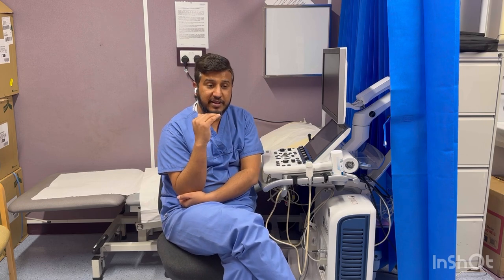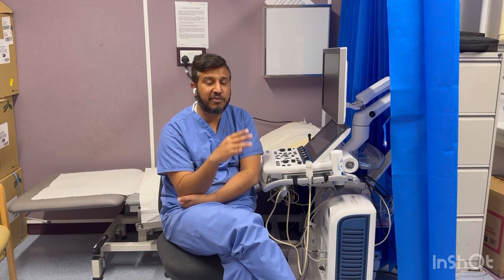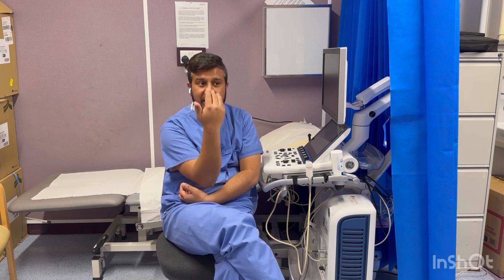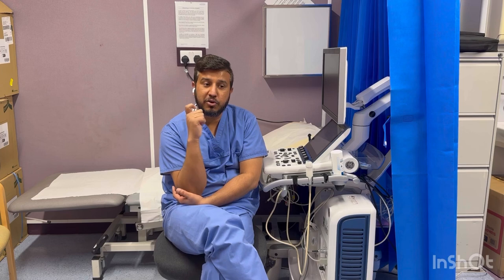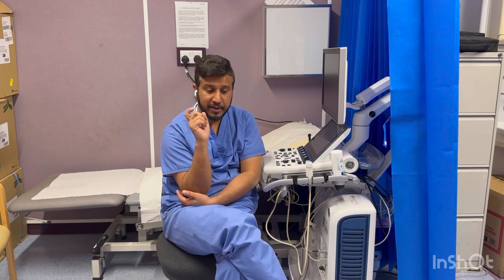Then we come to Doppler — we use mainly two types: continuous wave Doppler and pulse wave Doppler. We use Doppler to get the direction and velocity of blood flow. In 2D echocardiography we can't see blood flow or detect its velocity. In color Doppler we can see the flow but can't detect its velocity — that's why we use Doppler.